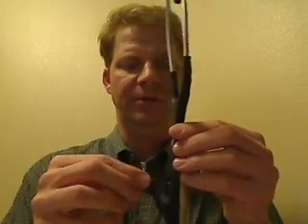The other thing I noticed is that the parts it's made of are probably a little on the cheap end. This plastic looks kind of cheap and lightweight — I would fear that if I dropped it, it would probably break. This tube is not polyurethane, which is what you'd like to see. On a Littmann Cardiology III you have polyurethane which is flexible, durable, and doesn't pick up a lot of grime. If you're going to carry this around, make sure it's well made because you'll be beating it up big time.